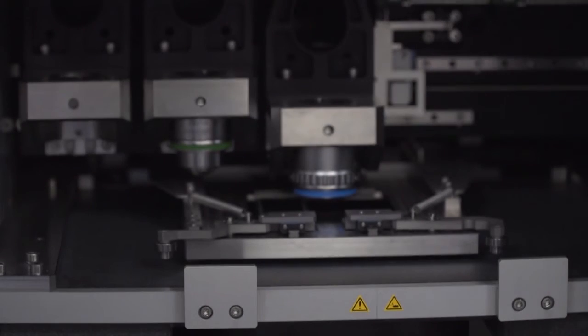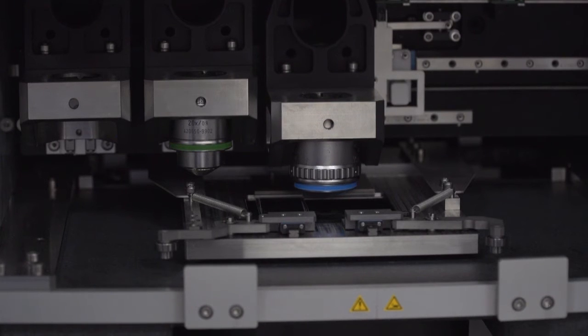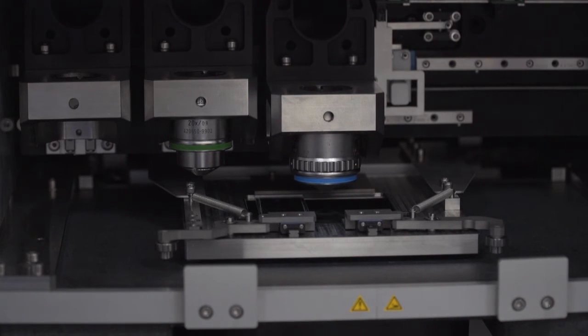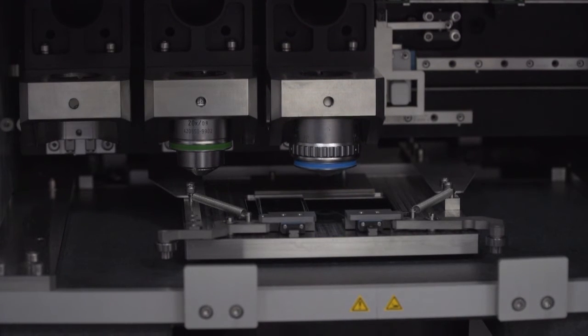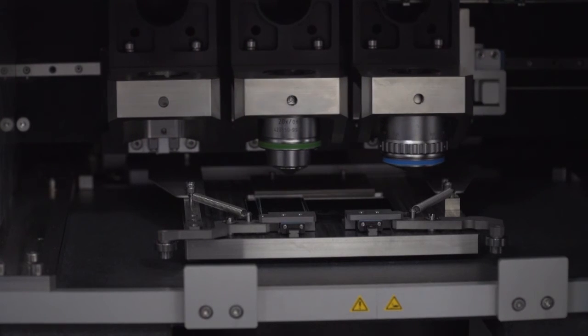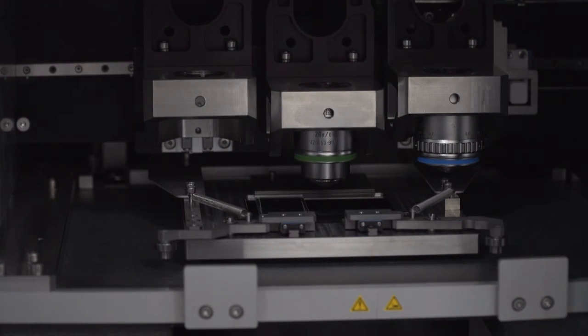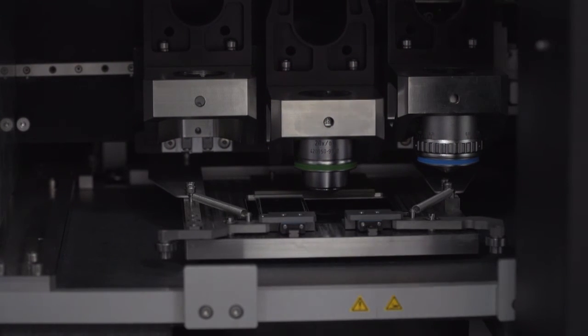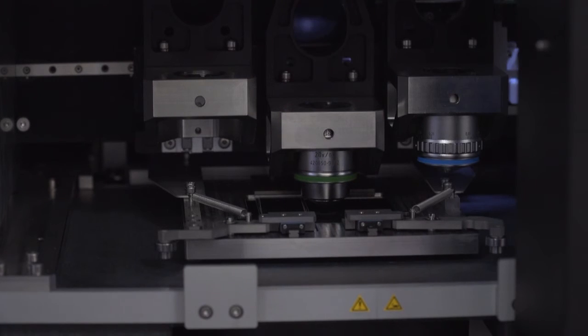Here, you can see the objective change. We're going from a real 40x objective to a real 20x objective. They are both plan apochromat lenses from Zeiss. The highest numerical aperture to give you amazing image quality.